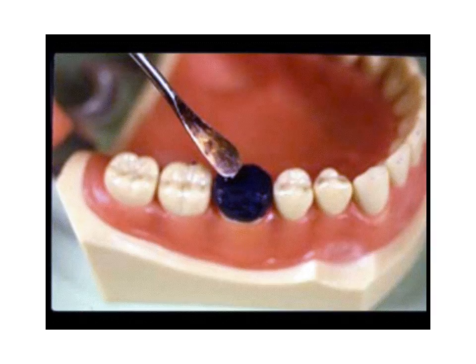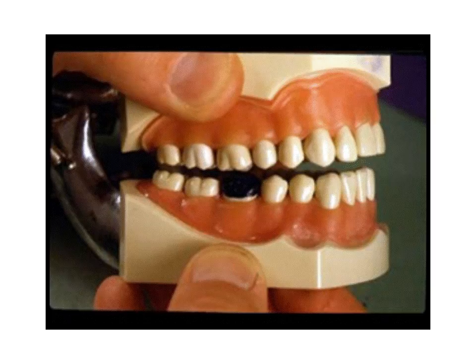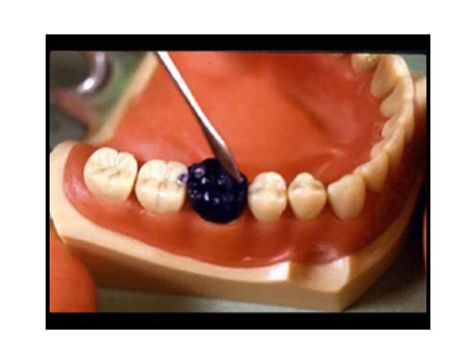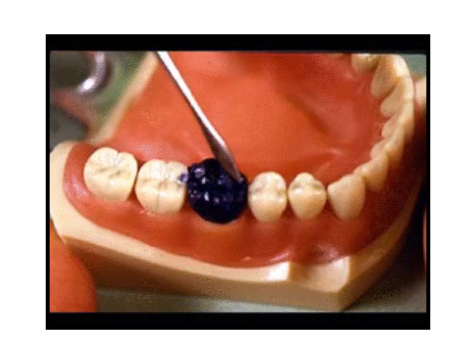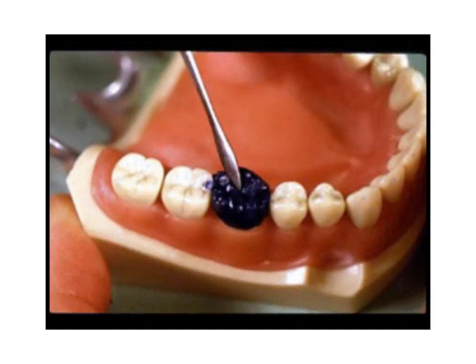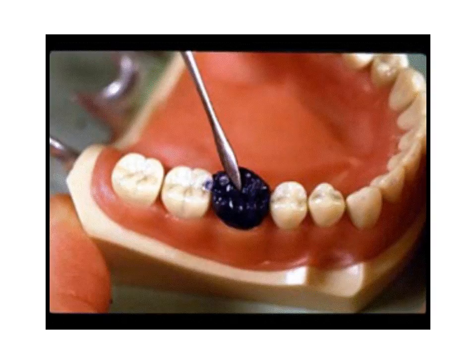Begin to develop the occlusal anatomy. The wax is warmed and the casts are closed together — areas of occlusion will be indented on the wax. Continue to refine anatomy and establish occlusal contacts. Sufficient horizontal overlap should exist to prevent cheek and tongue biting. In the posterior area, avoid edge-to-edge occlusion. Avoid broad contacts — discrete points are preferred. Avoid contacts on inclines; flat surfaces are preferred.